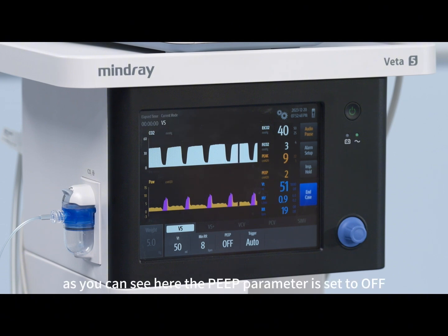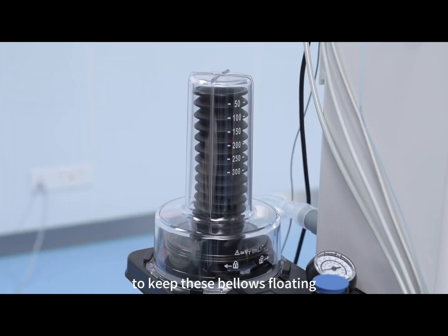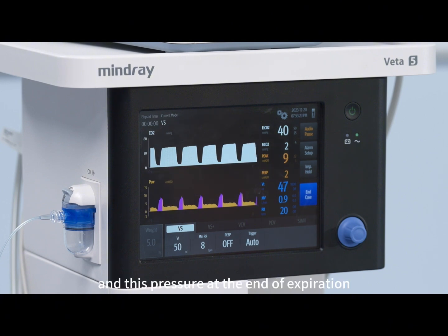As you can see here, the PEEP parameter is set to off, but this value is still 2 centimeters of water. The reason for this is that the ventilator has ascending bellows, and we need to keep a certain pressure in the breathing circuit to keep these bellows floating. Without this pressure, the bellows would be collapsing at the end of expiration and the patient would not be able to breathe. And this pressure at the end of expiration is in fact the same as the PEEP.